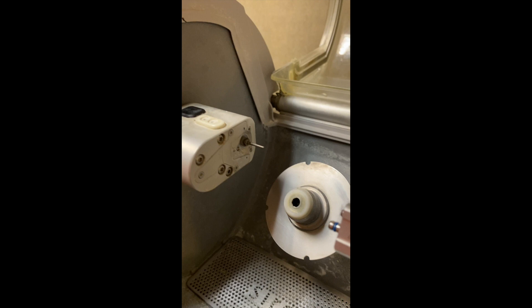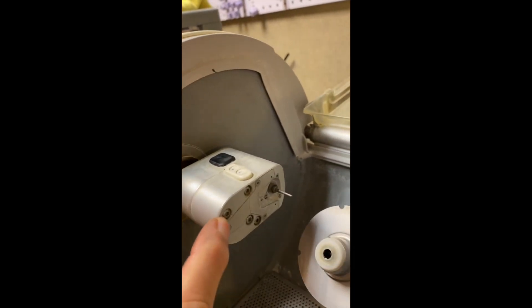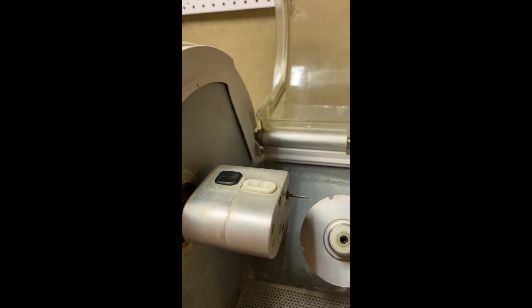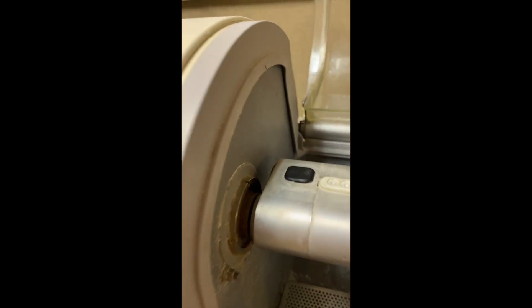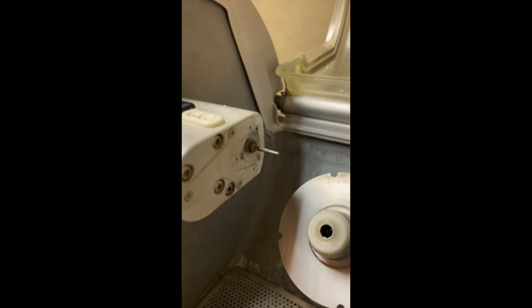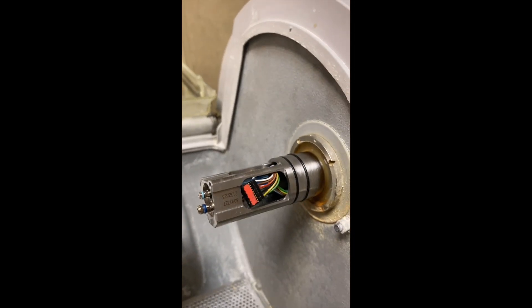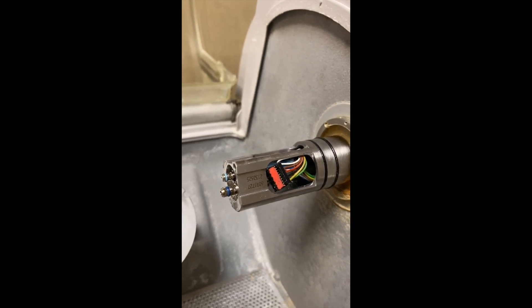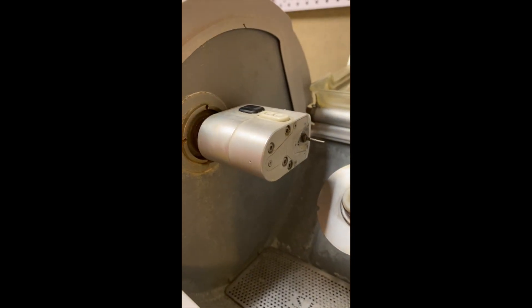There's quite a bit of cleaning that's going to be necessary through these little torque screws. There's a lot of buildup that gets in here from all the debris from the ceramics, so you've got to work on getting that stuff out of there and cleaned up so you don't strip these, and then take these apart. I'm in the process of putting in a new spindle motor and I'll take you through where I'm putting one back together, then we're going to go through the process of taking this apart.